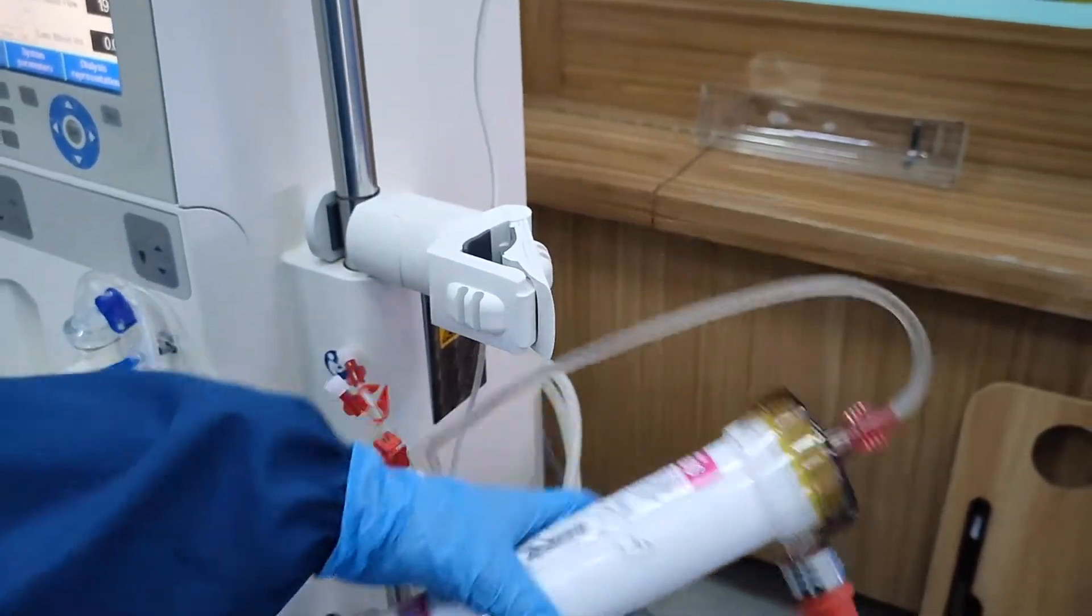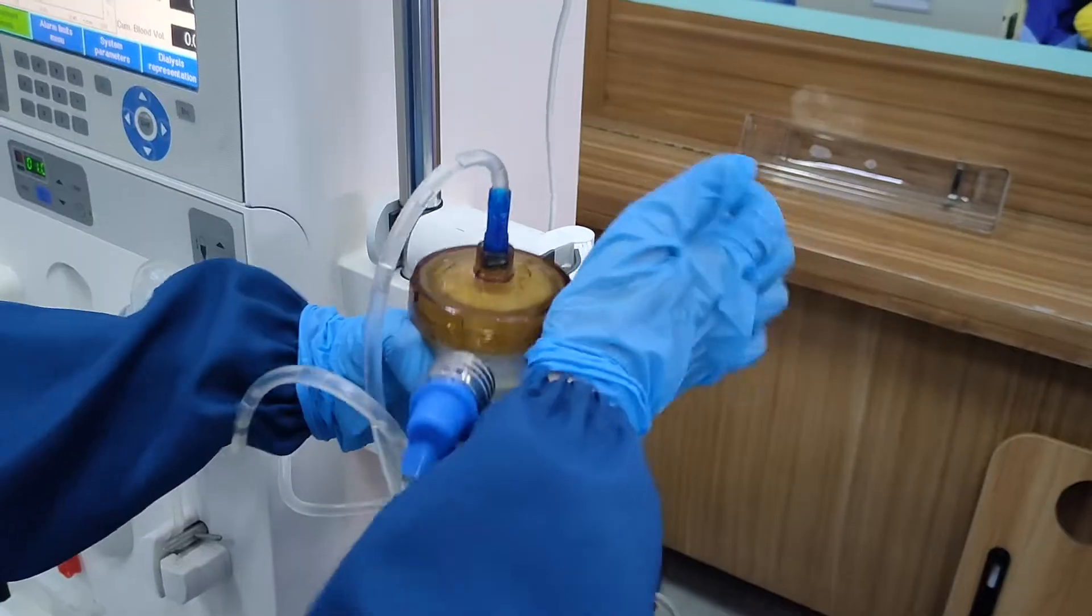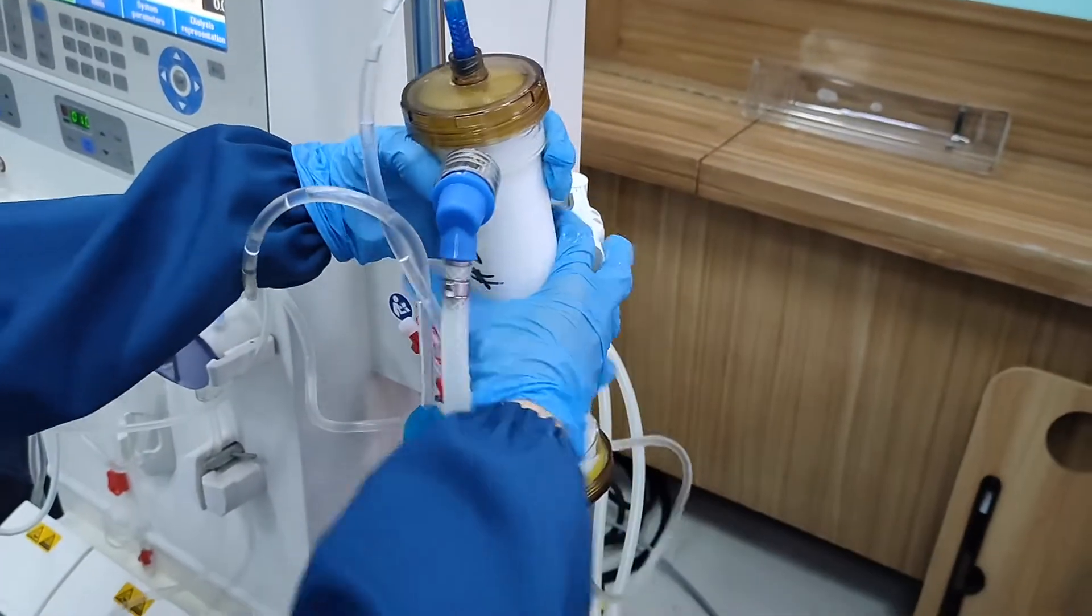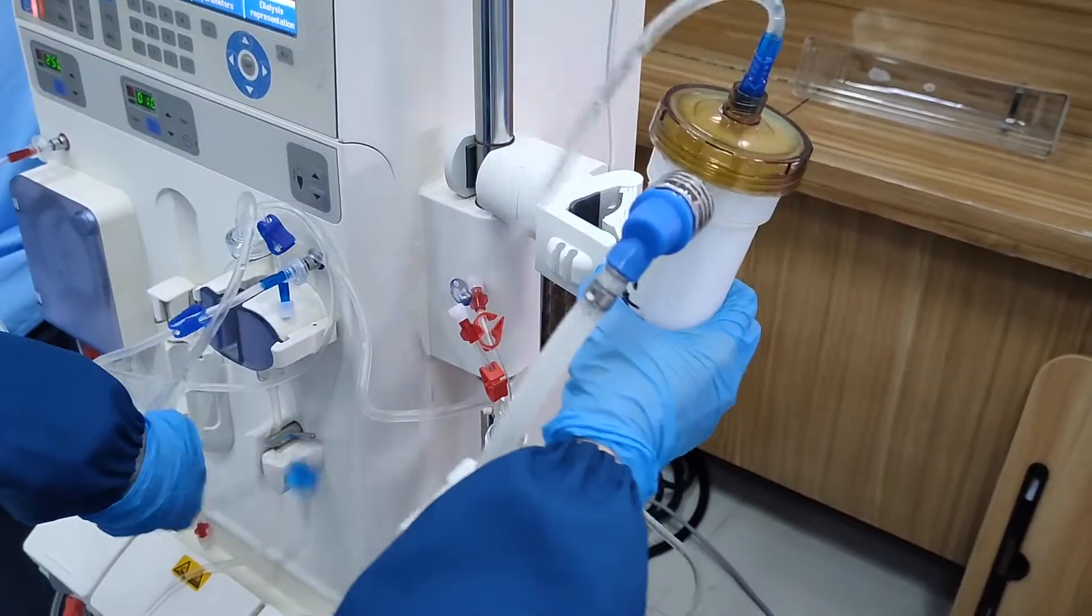Then, invert the dialyzer, which means blue must be up in order to expel air bubbles. Make sure there are no kinks when you are inverting the dialyzer.